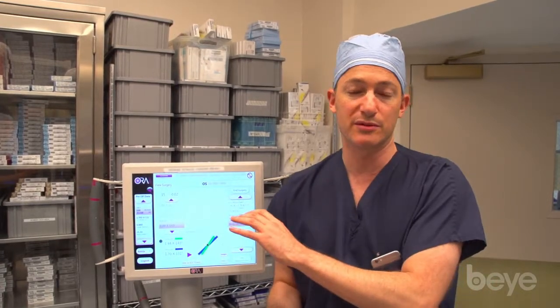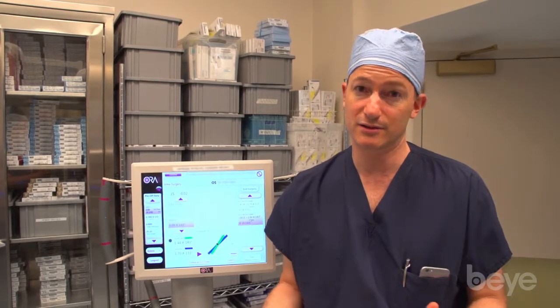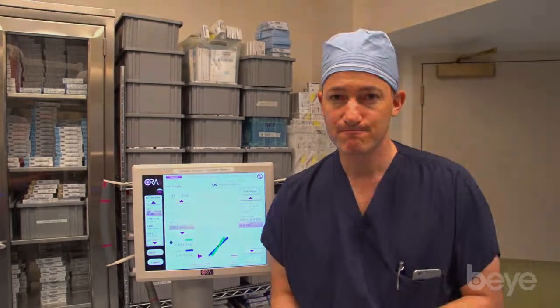The formulas are still estimating effective lens position, something not fully accounted for with intraoperative aberrometry because it cannot measure the z-axis positioning of the lens. We still have some ways to go to get better, but this is the best we've got and it's pretty darn good — we're getting LASIK-like outcomes with cataract surgery, and that's really where things are turning to refractive laser cataract surgery. This is a must-have for me; if this goes down one day I would consider canceling my cases — it's that important.